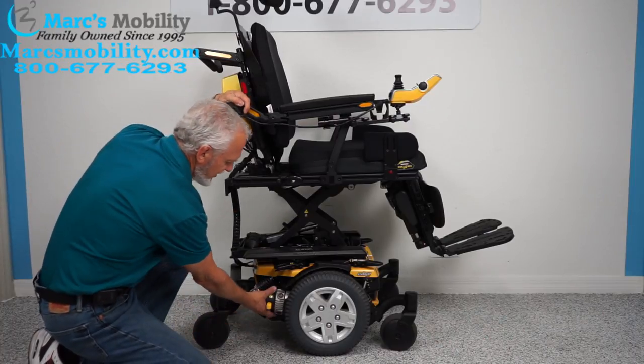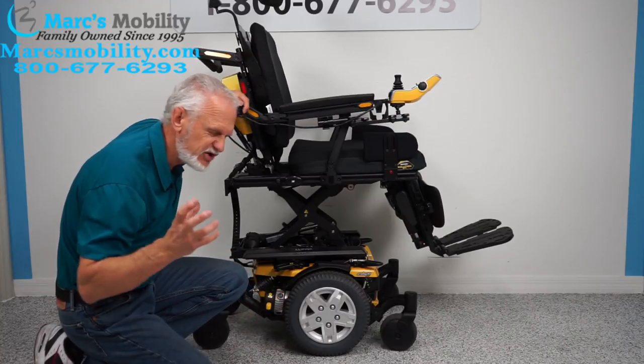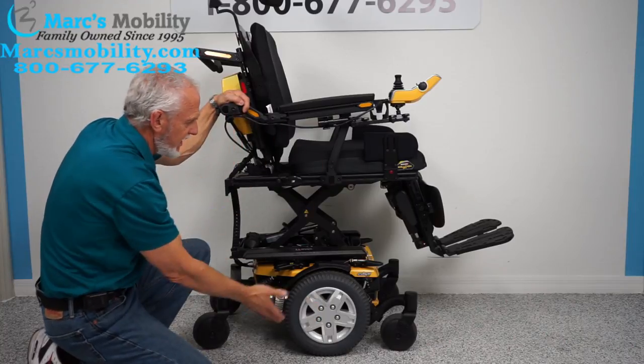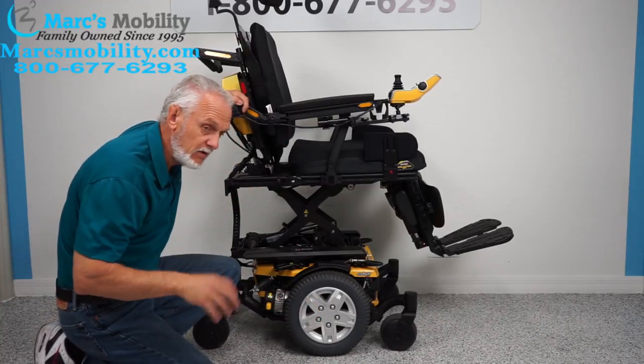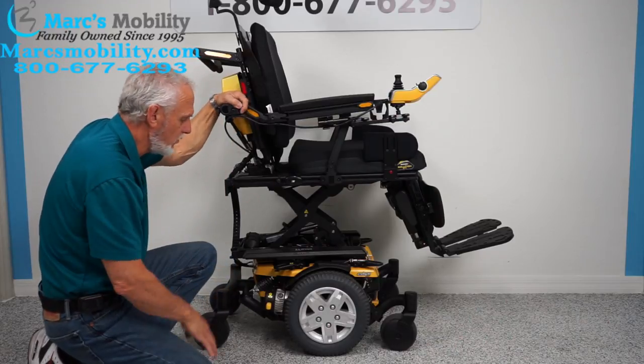You have HD motors — these are heavy duty motors, so they're a little bit noisier than your regular motor. You have a motor for each wheel. This chair right here probably weighs minimum 450 to 500 pounds because it's all metal and motors.